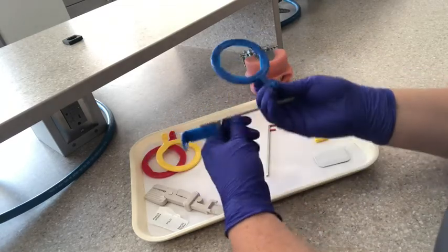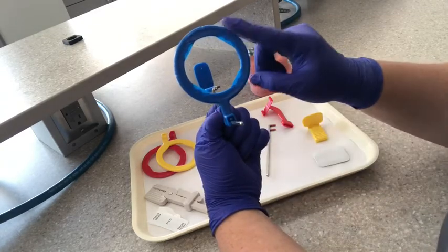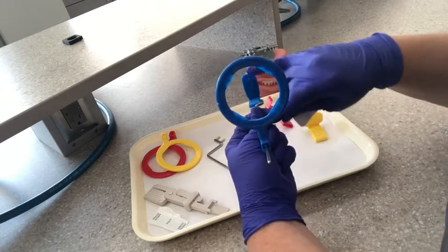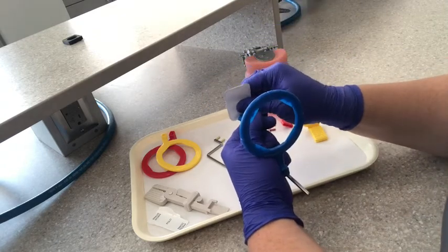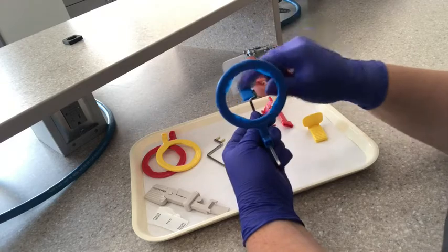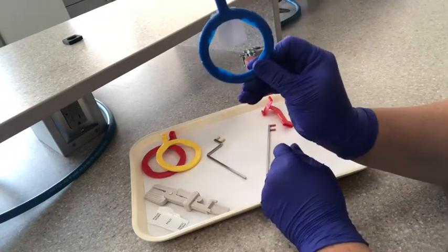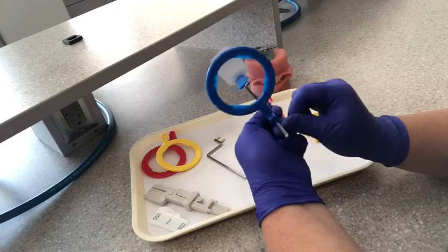We are going to slide the ring down on the bar. Look and we see the bite block centered on the ring. You're going to get your film — feel for that dot. For the anterior, since the bite block is vertical, your film is also going to be vertical. You would pull the back support back, and then your film will grab right in there. This would be for the anterior periapical, and it's for maxillary. If you're going to do mandibular, you would just flip it around. So that is your anterior XCP.